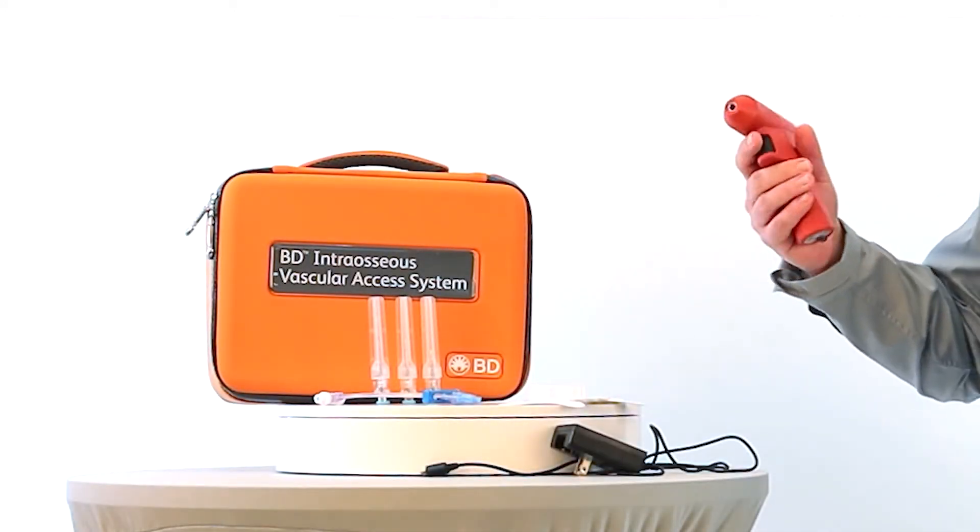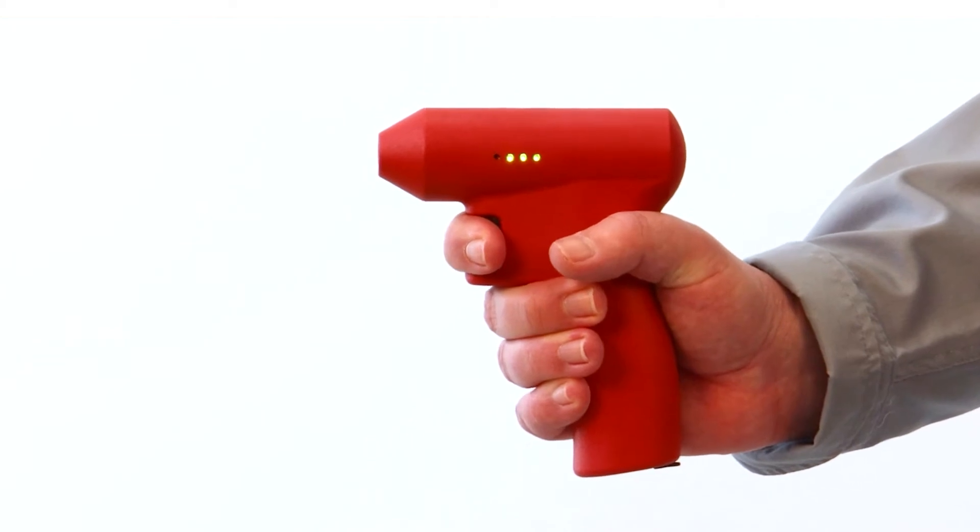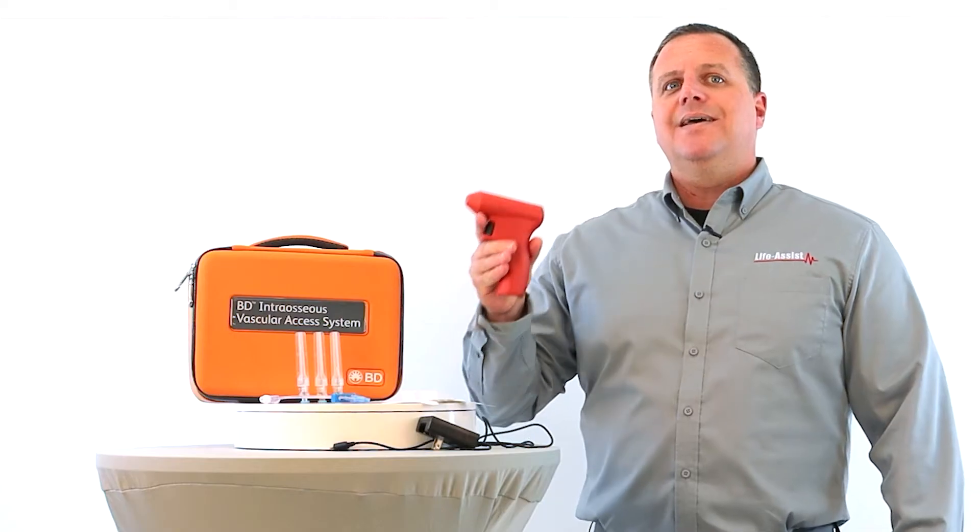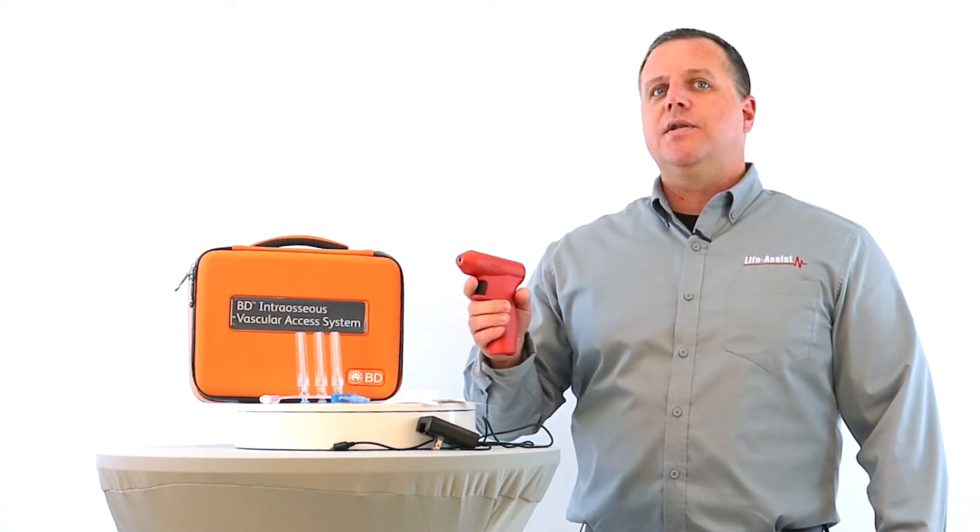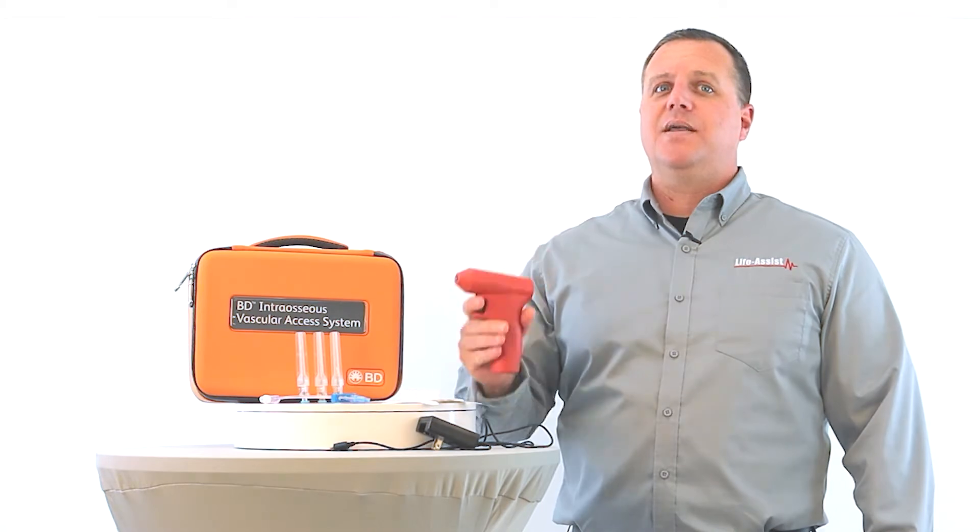So let's take a look at the power driver. First of all, we have a nice battery indicator light. As you can see, it'll tell you the battery status so you know this thing will be ready whenever you need it. Second of all, the battery that is included here is 12 times longer lasting than its competitor.